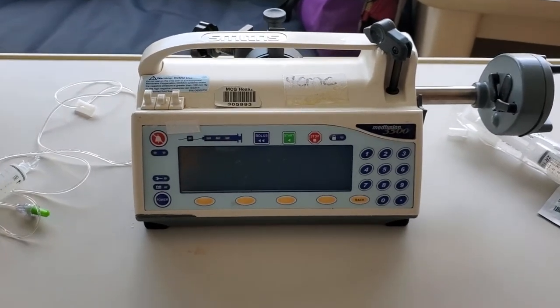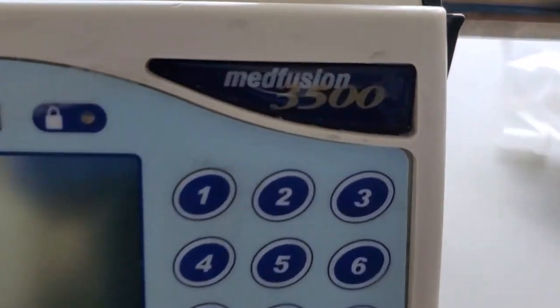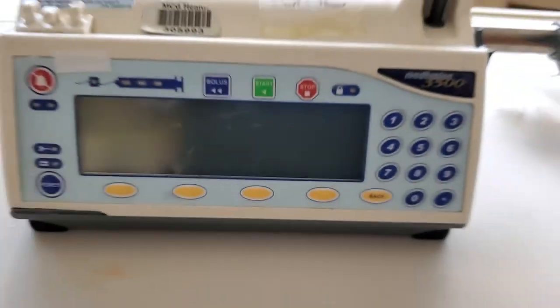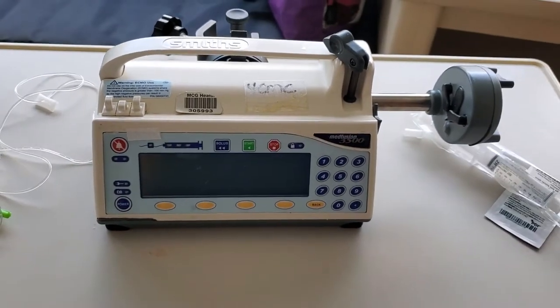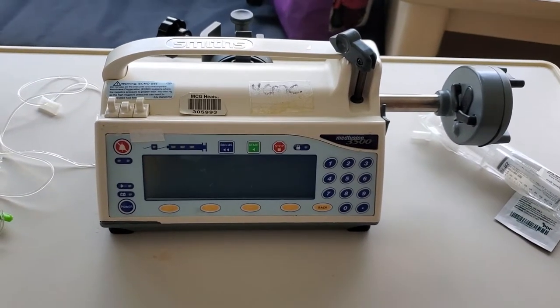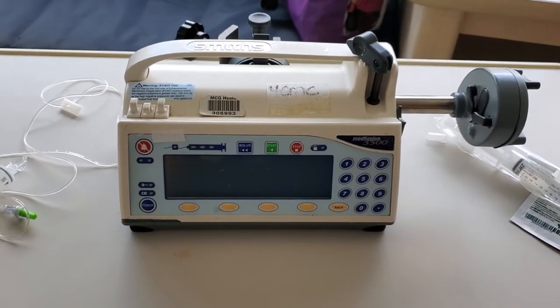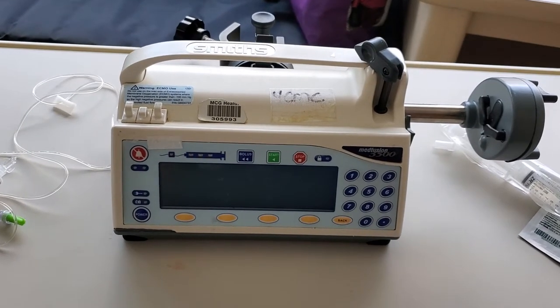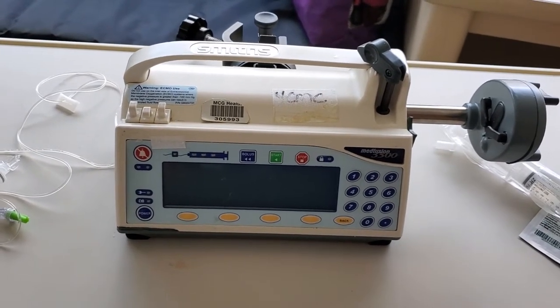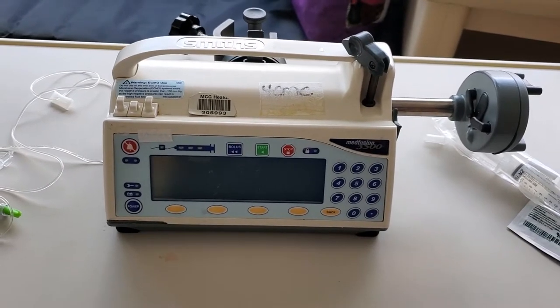Welcome to how to use a syringe pump. This particular syringe pump is a MedFusion 3500, and this is a way for us to give our medications to infants in a small amount of volume. You'll see these in the ICUs but also sometimes in pediatrics. It prevents us having to use 20 to 25 mls to flush a medication in a standard IV pump.